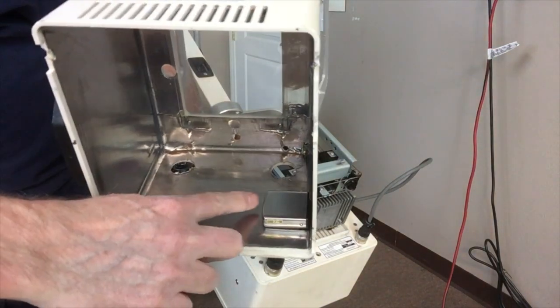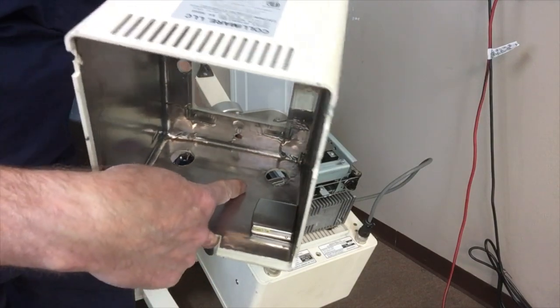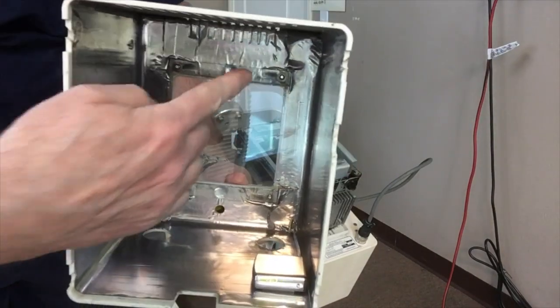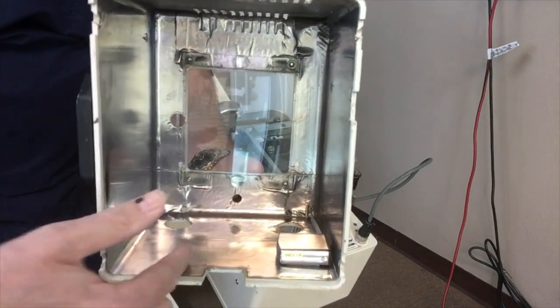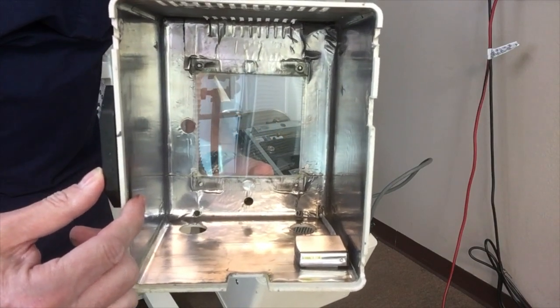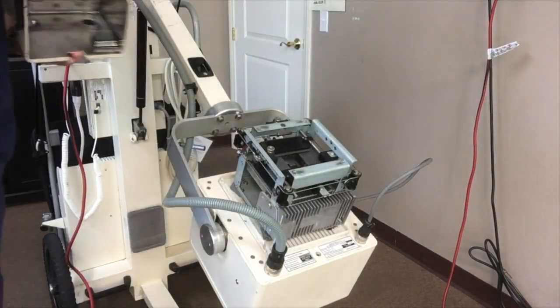You can see the lead foil in there and the tape measure in the corner. If you disrupt the tape measure the foil gets torn. From personal experience, once the lead has been disrupted you won't pass your state inspection because you'll have too much radiation coming back towards you. So you have to be careful not to disrupt this when taking it on or off.